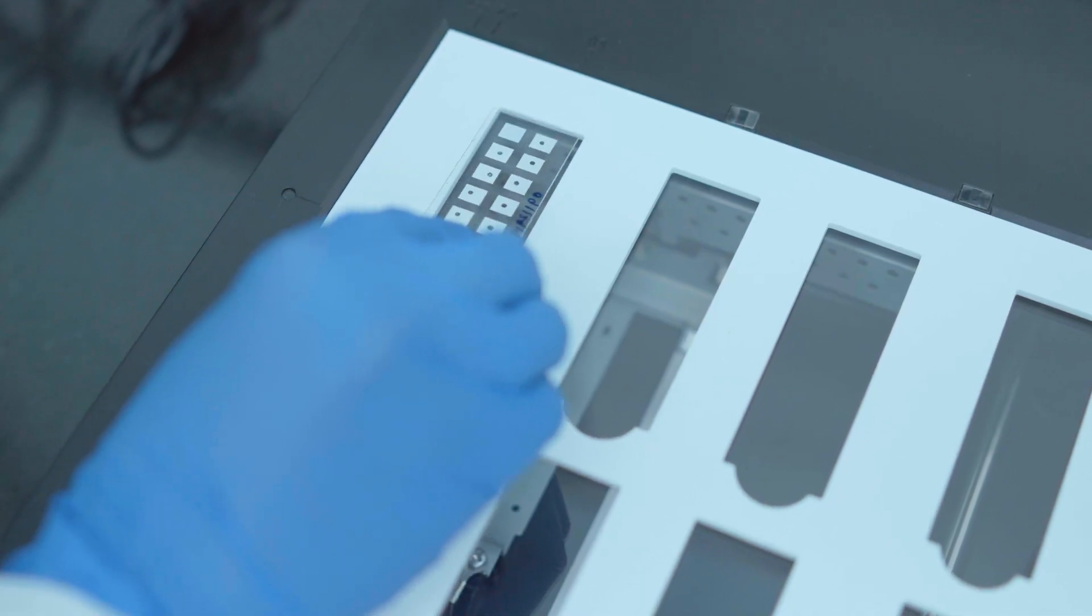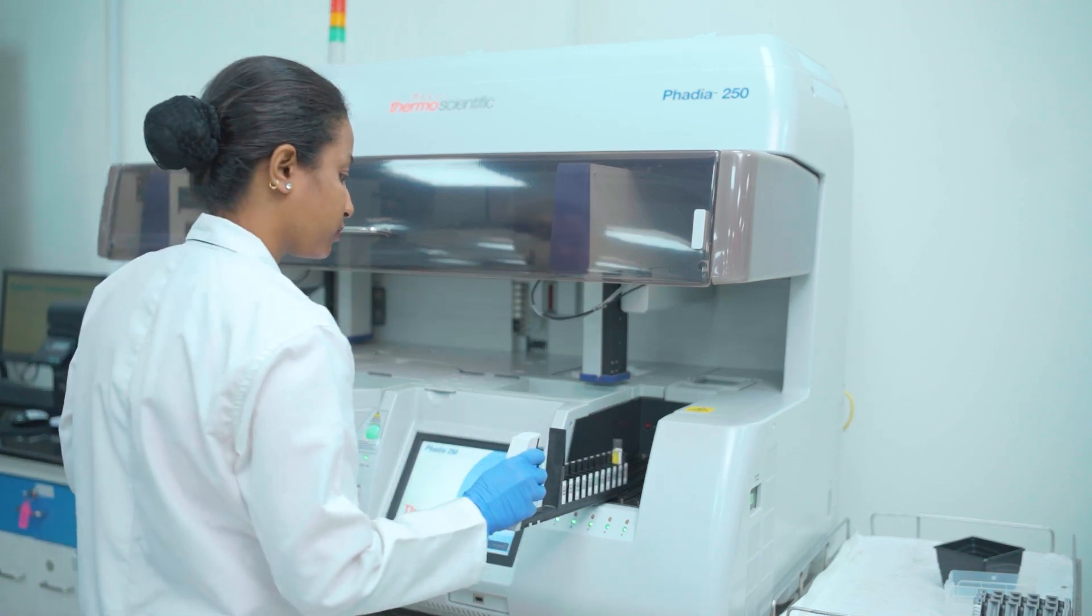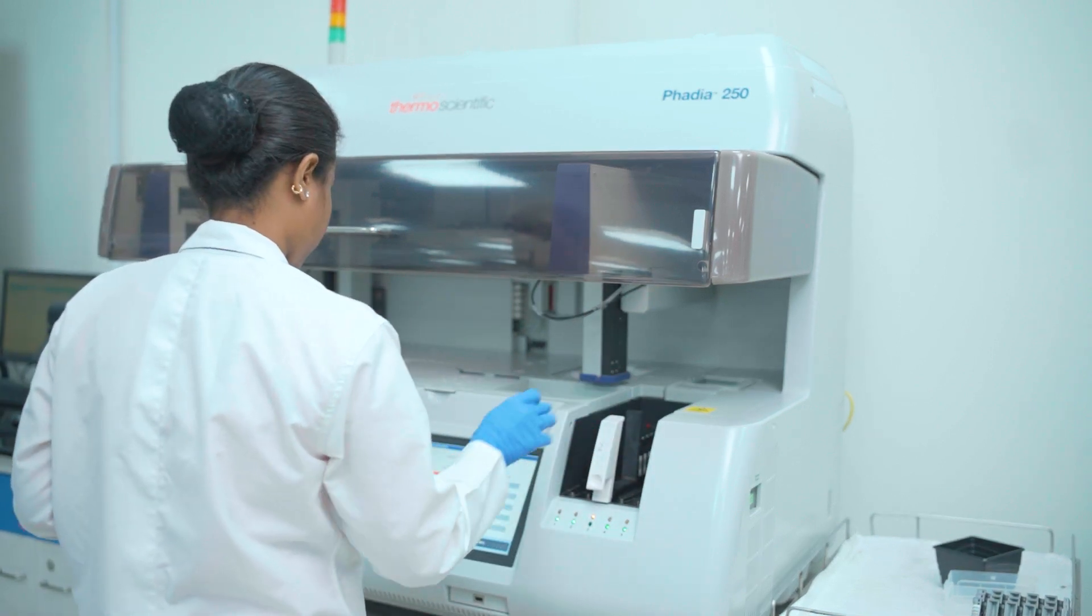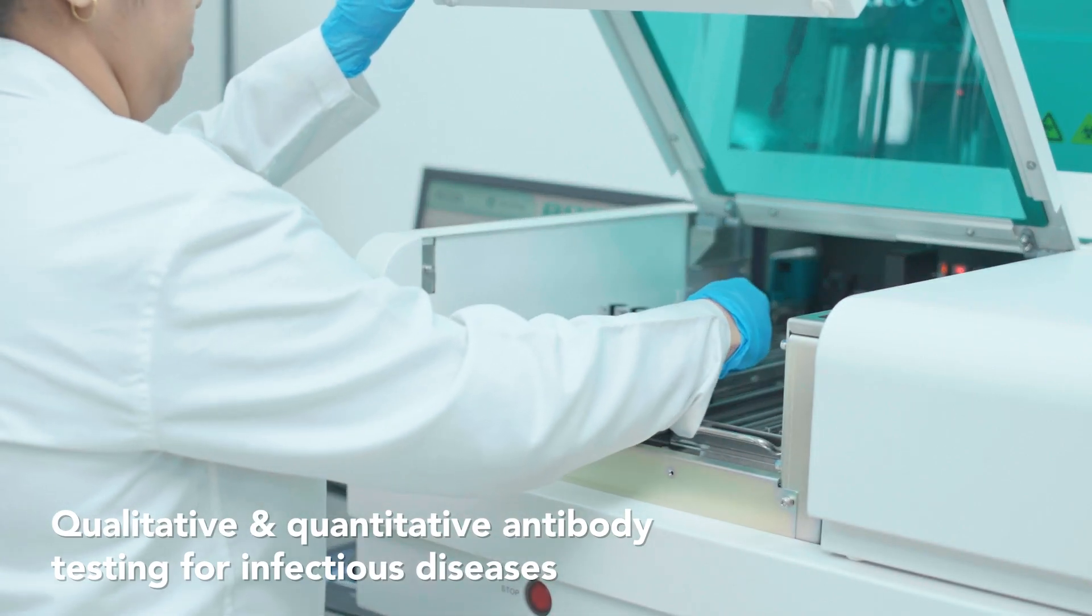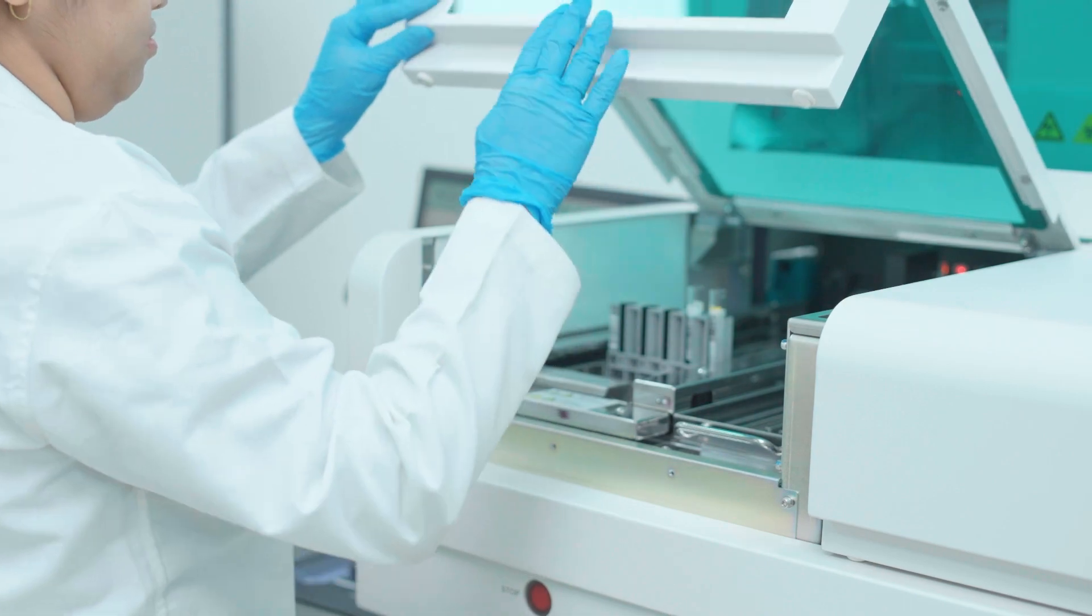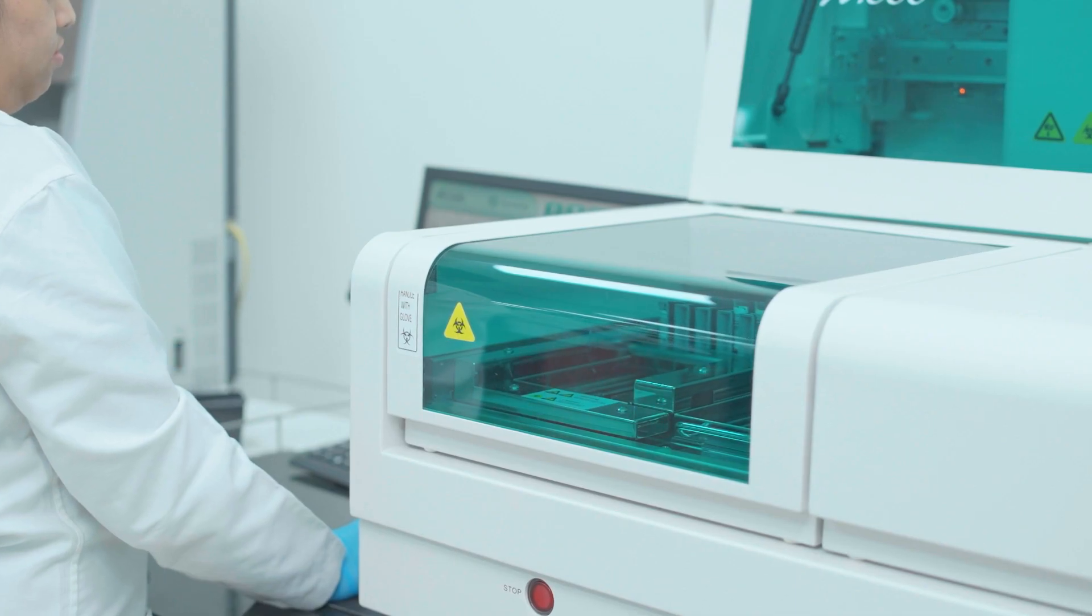Offering one of the most comprehensive food intolerance and allergy testing menus in India, we provide a full range of qualitative and quantitative antibody testing for infectious diseases of every stripe, including full-spectrum antibody testing for all hepatitis viruses.